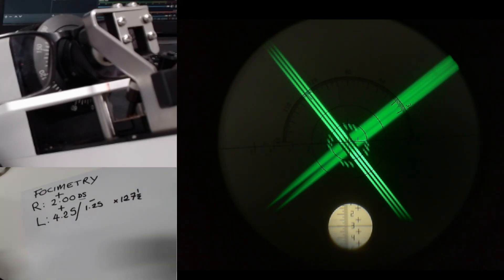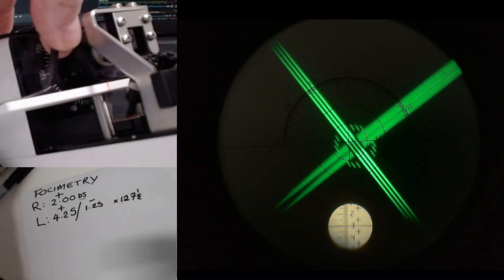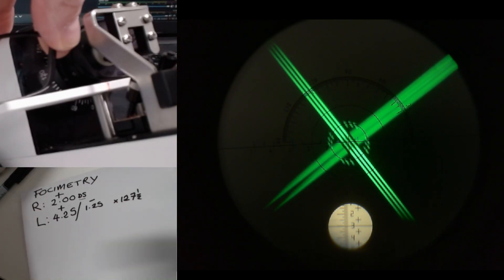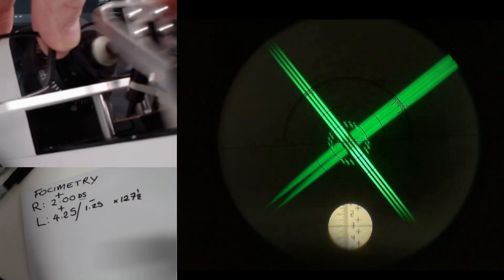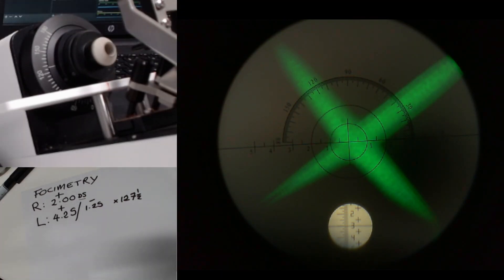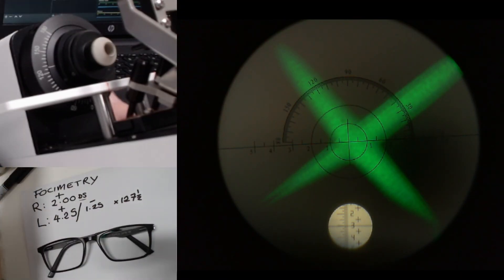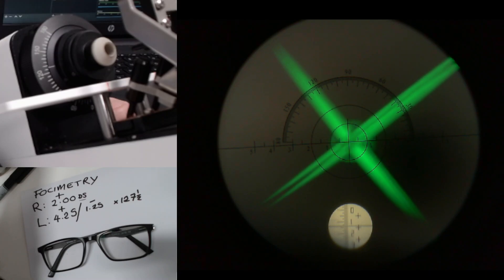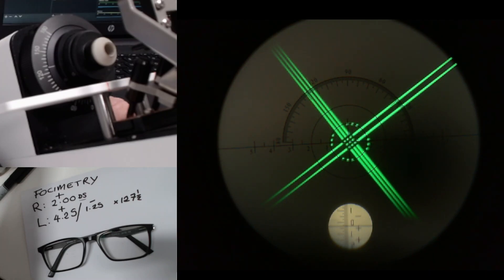I'm just going to move that into the center and I'm going to dot the centers as well. Can you see that that is a relatively straightforward way of working out a relatively straightforward prescription? Thank you very much indeed.